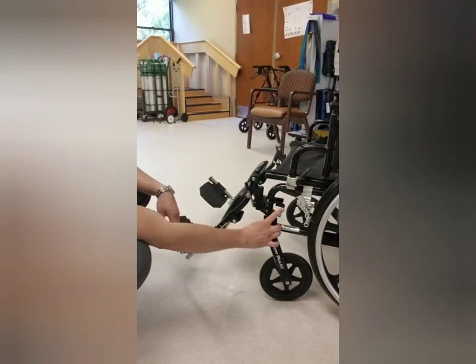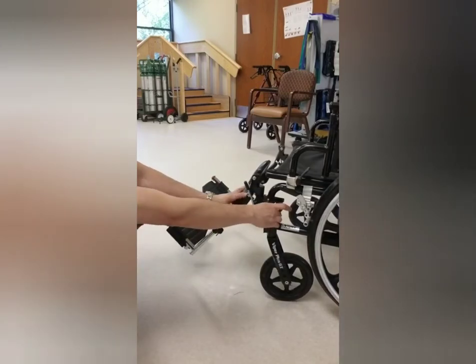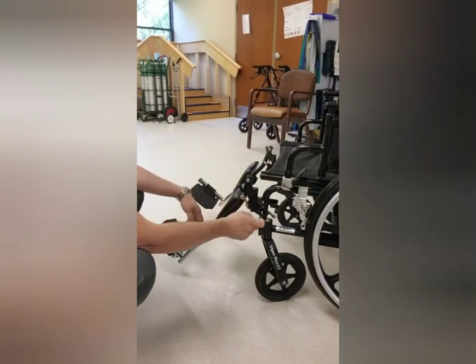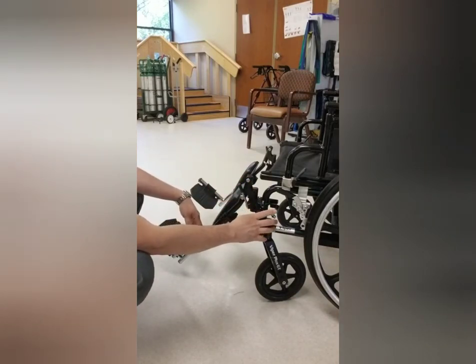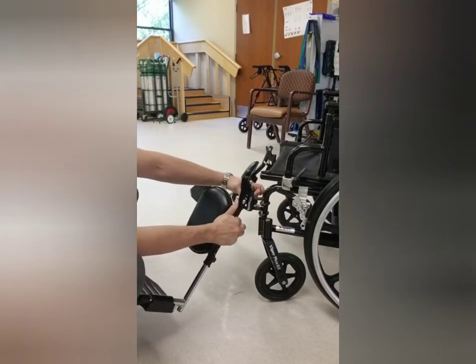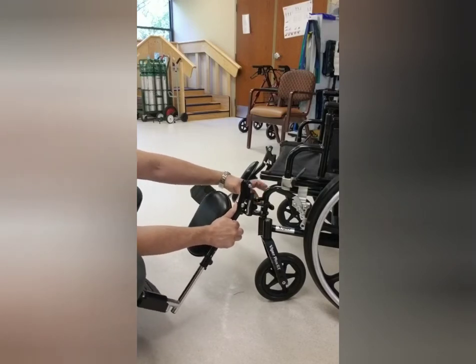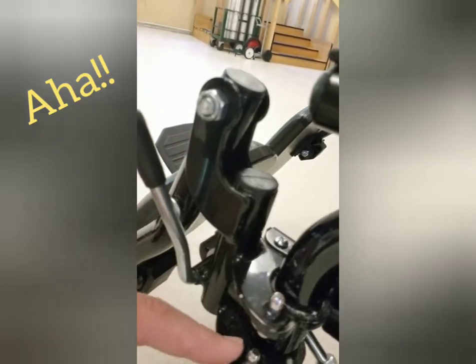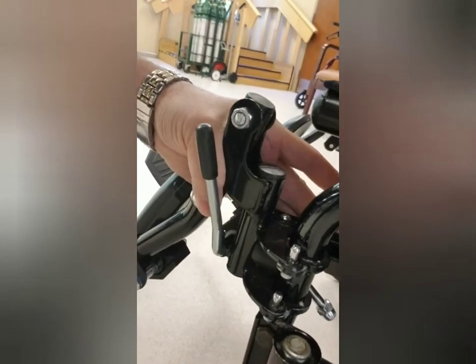There's a little lever here that allows the leg rest to swing away, getting it out of the way for somebody getting in and out of the chair. When you want to take them off, a lot of people try to lift them directly and they seem to get stuck — that doesn't work well. When removing or installing them, it's easier to swing them at least halfway out first and they'll slide right up. When bringing them back on, align them with the notches and make sure they're secure. Move the rest away, come off the notches, line the holes up, and once it catches it'll go all the way through and secure.